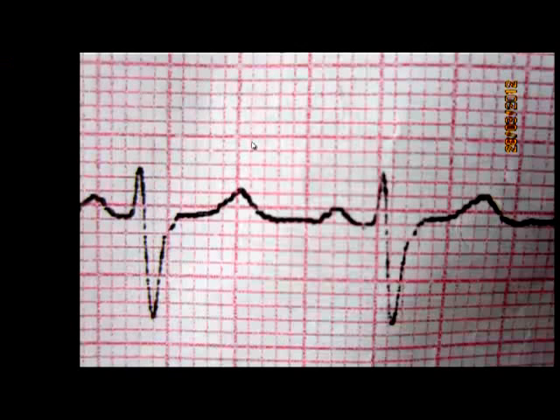Hi friends, today we are going to talk about ECG paper.